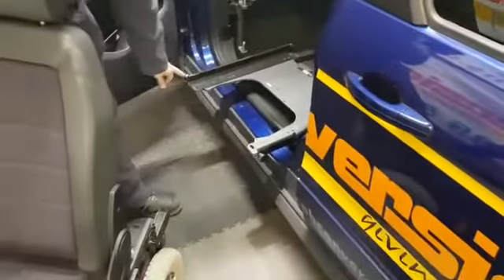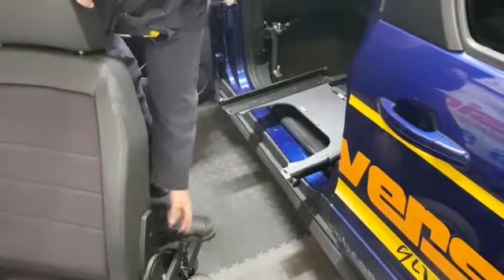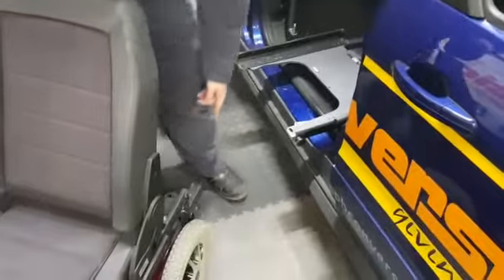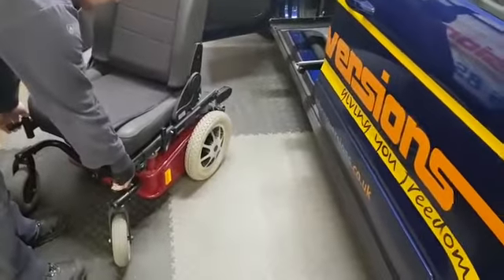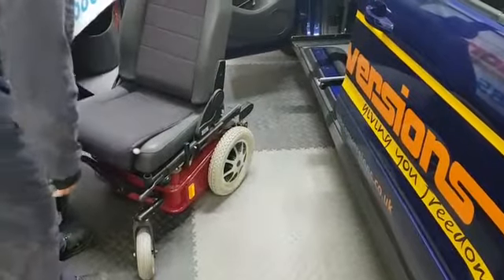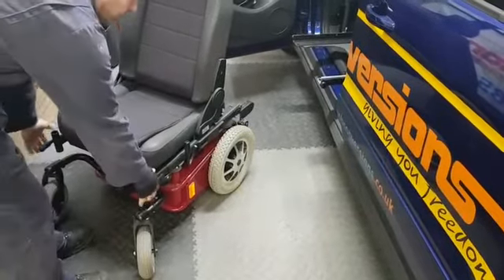As you can see here, we have the two ball ends that lock in — they lock in on this part here. Nice and simple. There are two handles on the side which open the flaps for where it can go into. To drive in you don't need to do it, but to come back out we need to open them.